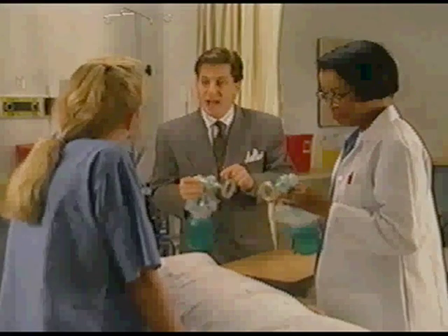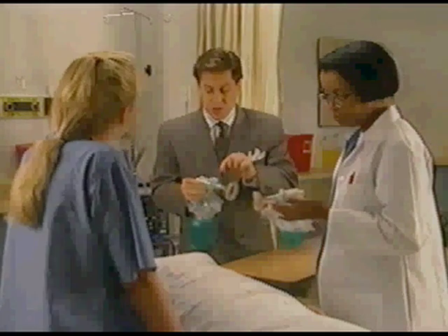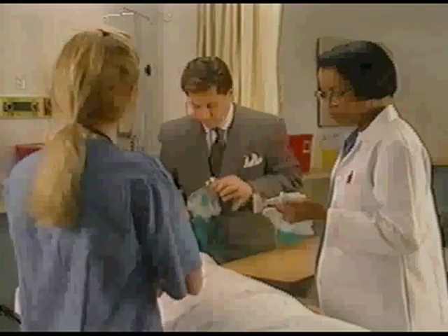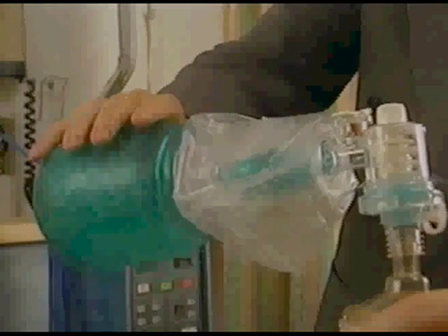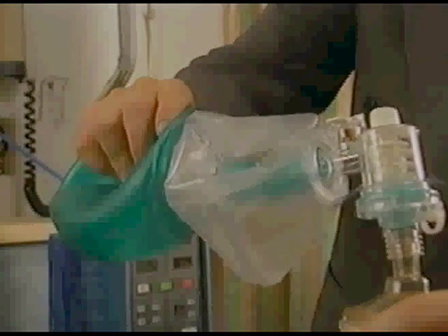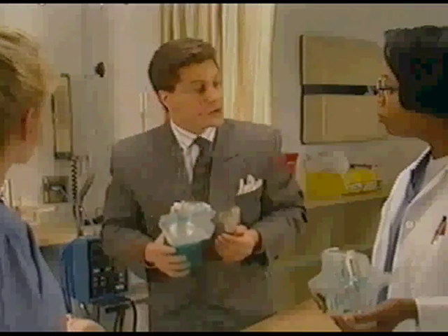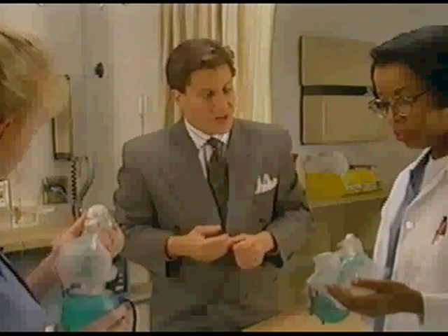Here by the patient connector is another safety feature — the pressure pick-off port. This white cap should always be in place if you're not monitoring pressure. If you are monitoring pressure, remove the white cap and connect your manometer. You use the child's bag just like the adult one. Make sure you have a good seal and then bag according to hospital protocol. The infant bag has all of the features of the child's model and is used in the same way.